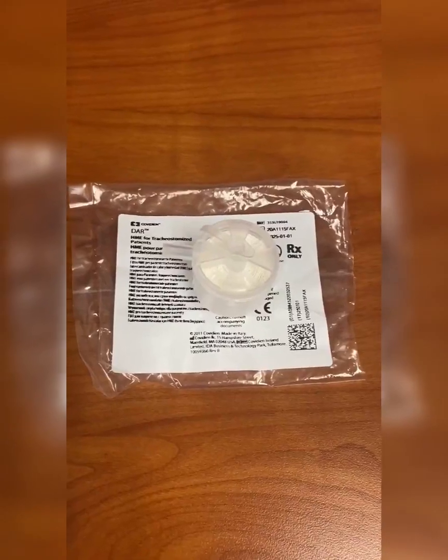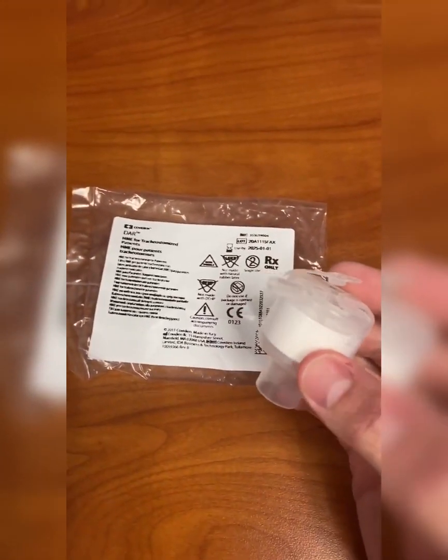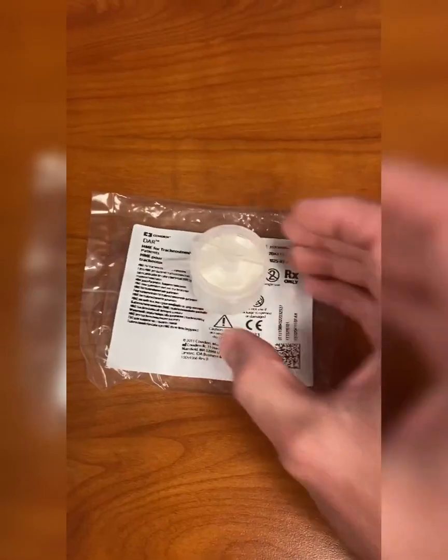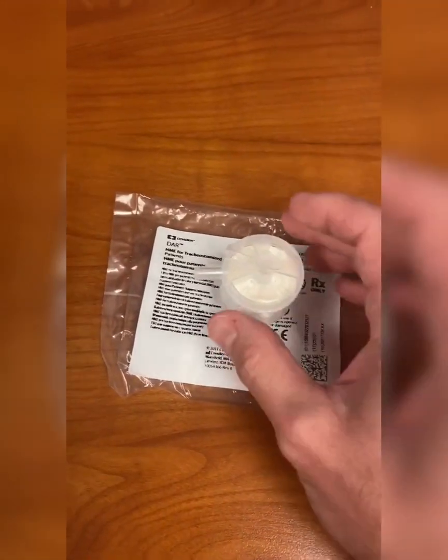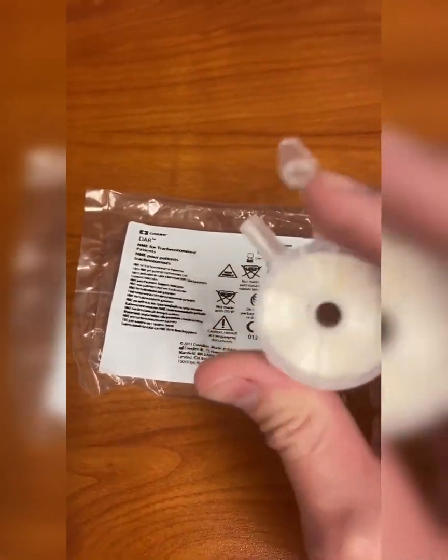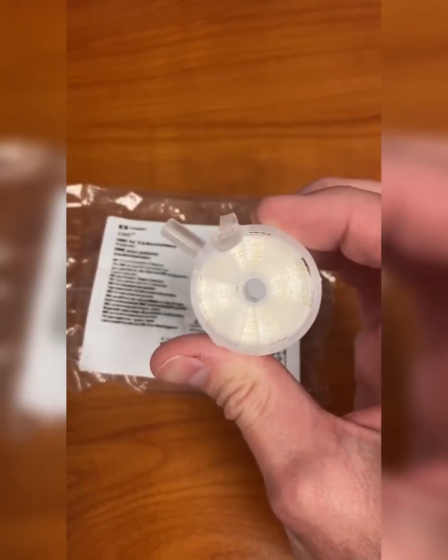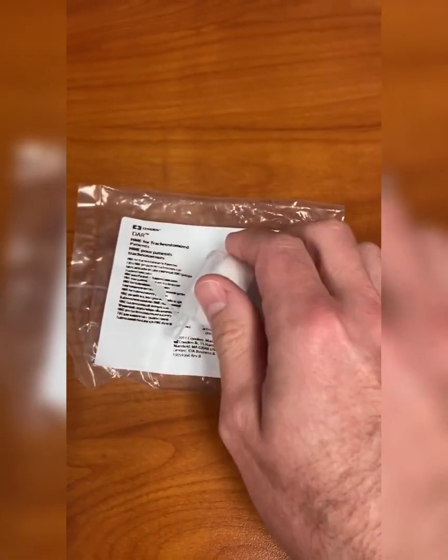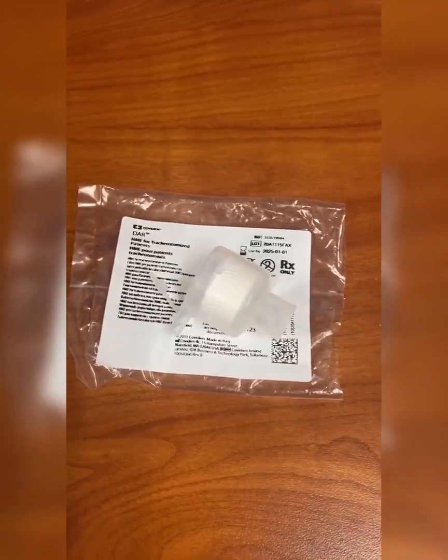A couple other cool things about this device: number one, you can connect your oxygen tubing to it, and that way you can run blow-by oxygen. It also has this little port here, and you can put a suction catheter right through there for any time you need to suction your patient. And then when you're done, you would just close that tab.